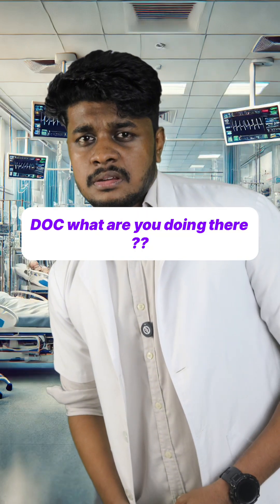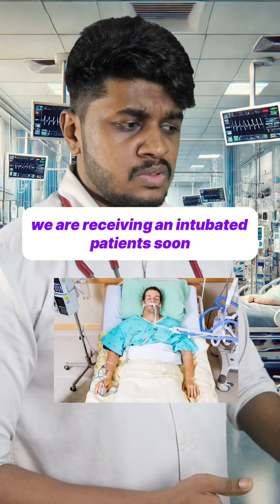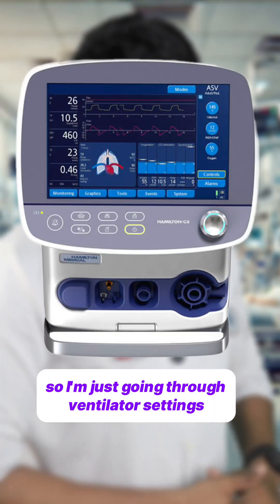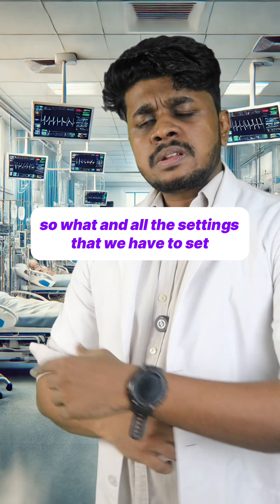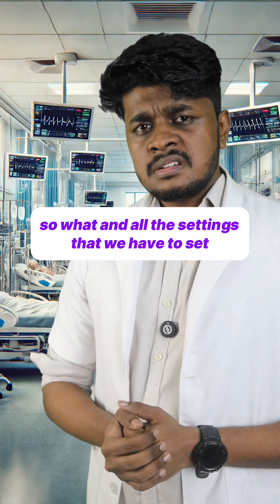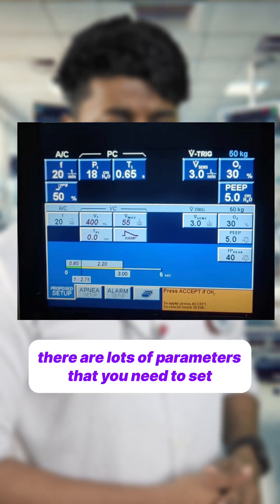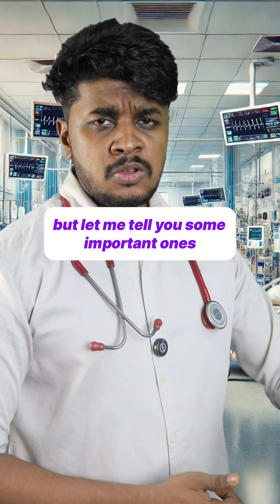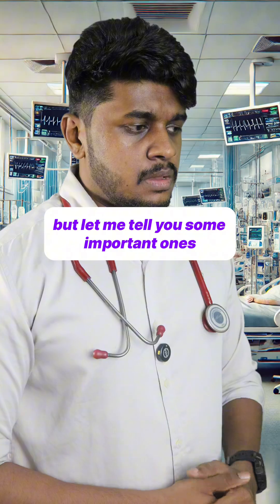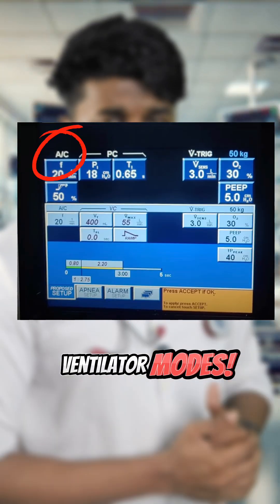Doc, what are you doing there? We are receiving an intubated patient soon, so I'm just going through ventilator settings. Interesting, so what are the settings that we have to set? There are lots of parameters that you need to set, but let me tell you some important ones. First, you need to set the ventilator mode, which I already taught you.